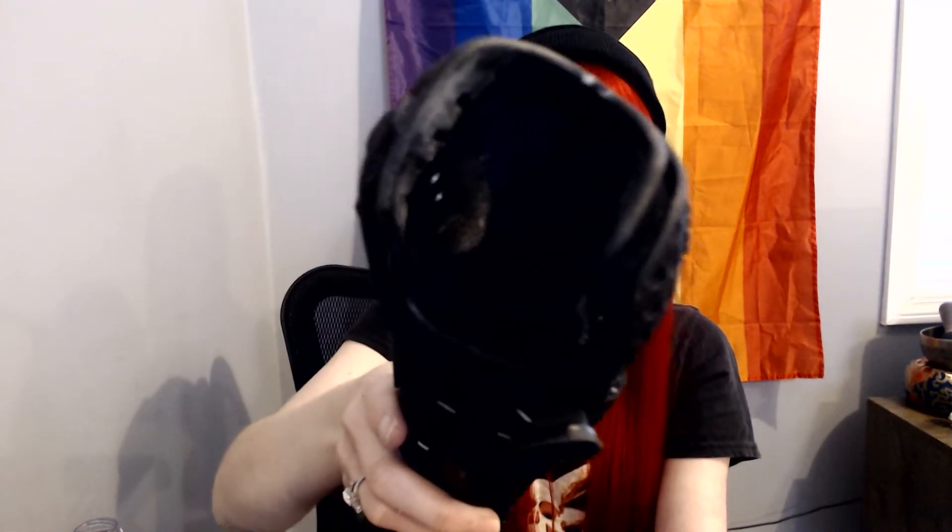I have yet to master moving it in and out with my arm, but if you flex certain muscles you can move this out. Right here, you can see these shiny little metal pieces — there's three on that side and three on this side here. Those line up with specific muscle groupings on my arm, right here and right here, so that operates the arm. When I flex the inside muscles, the hand closes. When I flex the outside, it opens. And it's really that simple.